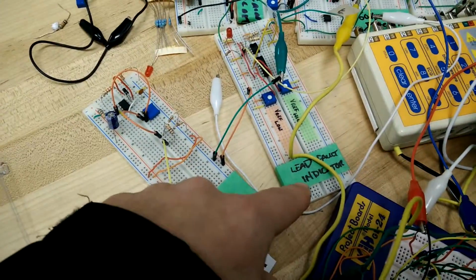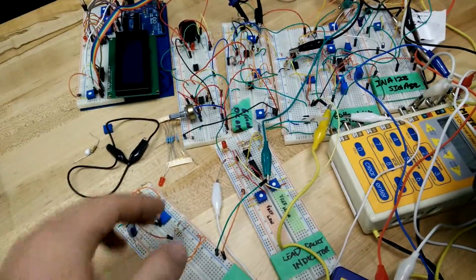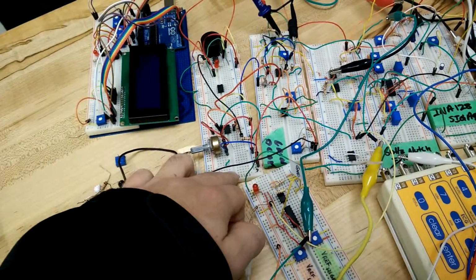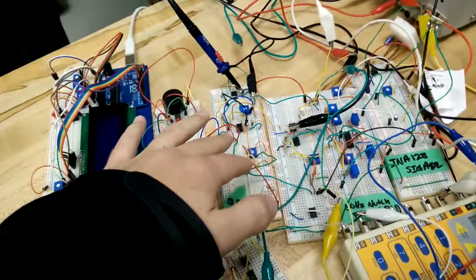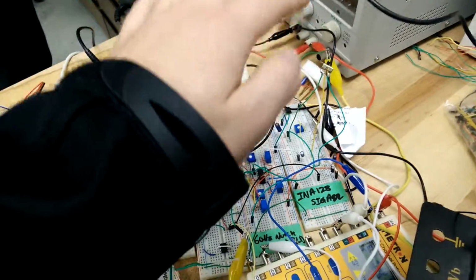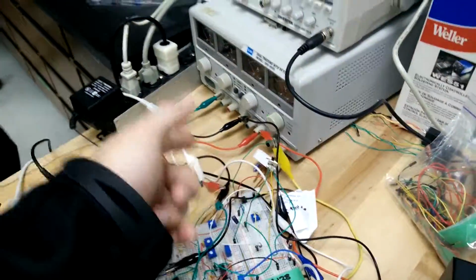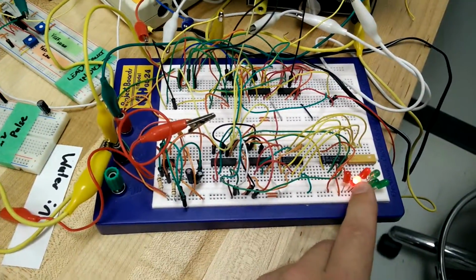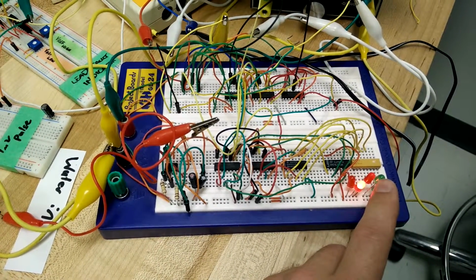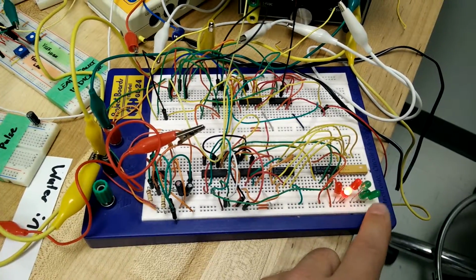Here we have a lead fault indicator, a 1 millivolt pulse for calibration purposes. Here's the peak detector, the filtering process, the amplification process, and our specific signals. We can go into normal signal, diagnostic mode, things like that. Here we have lead 1, lead 2, lead 3. We then have the patient sim, the 1 millivolt pulse, and an auto zero detector.